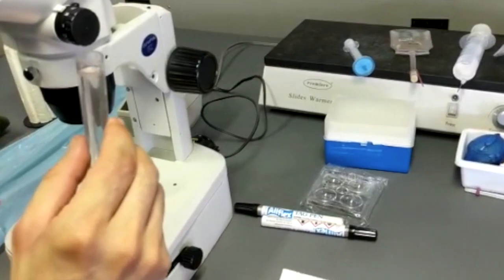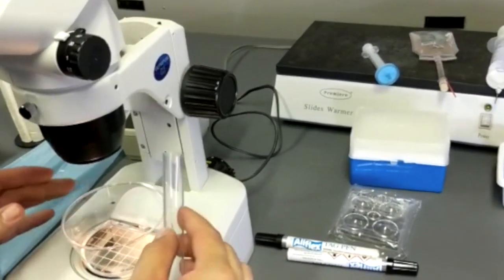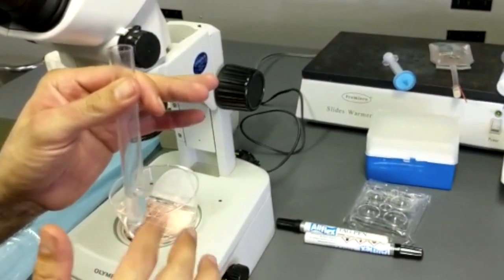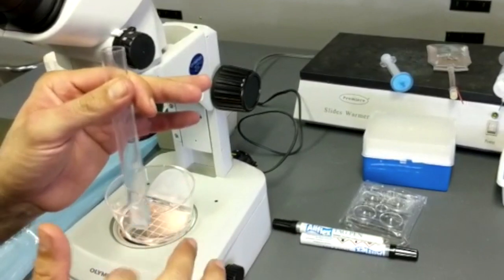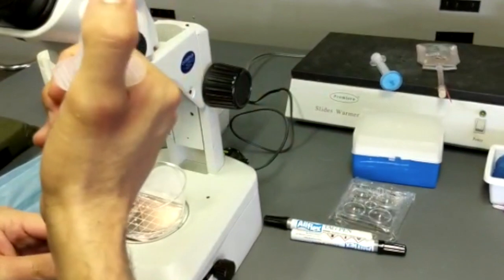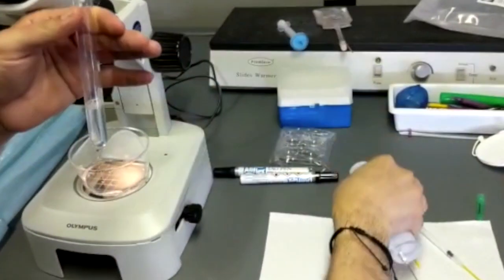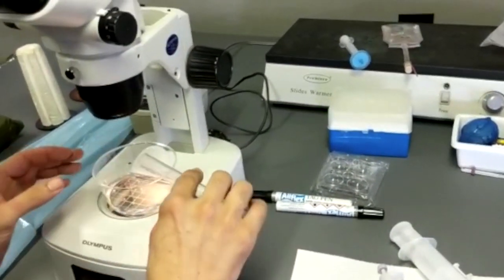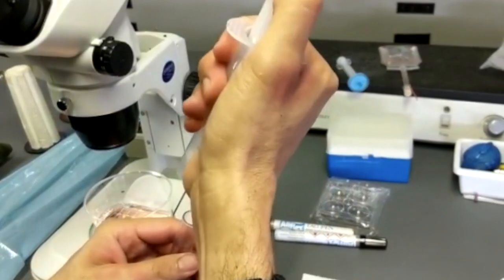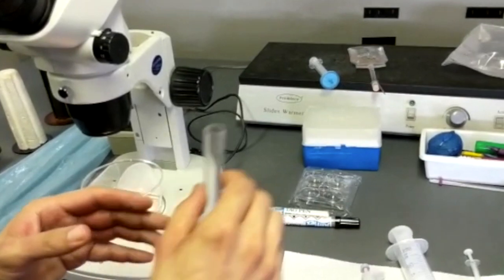Couldn't find anything. Now I'm going to empty the contents of the test tube, agitate this a little bit, and now I'm going to search for the embryo.